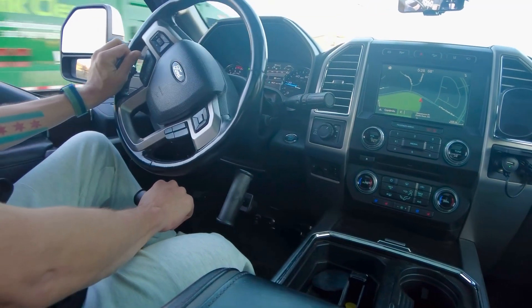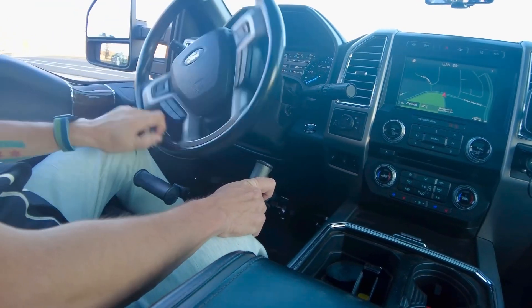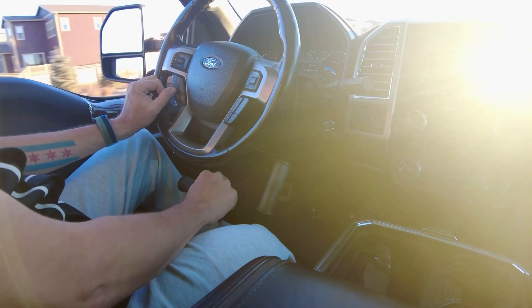I love that I get full range on the gas pedal, which is nice on this turbo diesel — when I want it, I want it, that's why I paid for it. Super smooth articulation using this as a brake — very impressed with that. The entire time I've been filming this I haven't even looked down at the controls really. It's just pretty intuitive where they are.